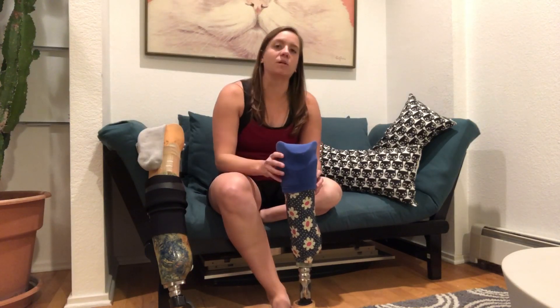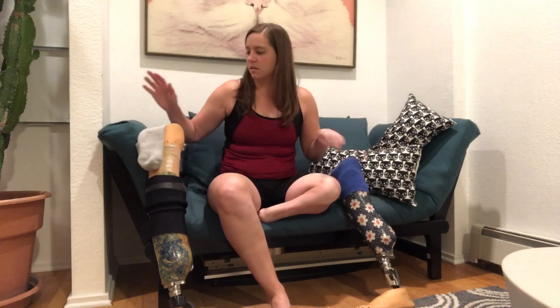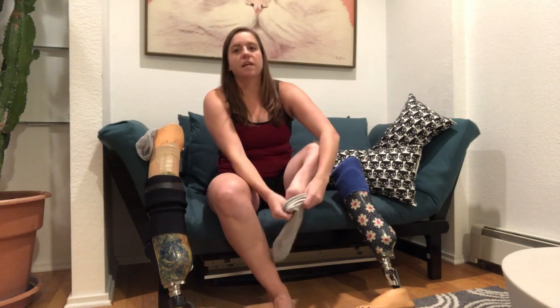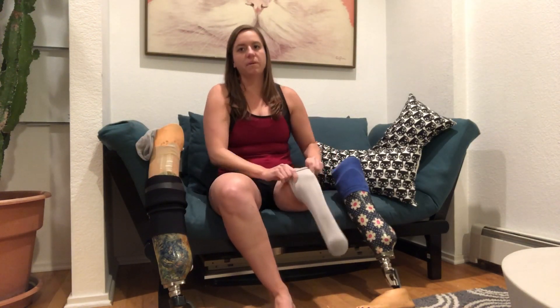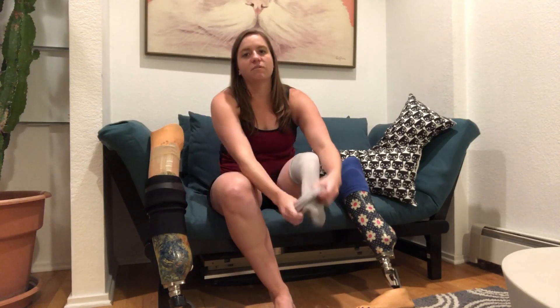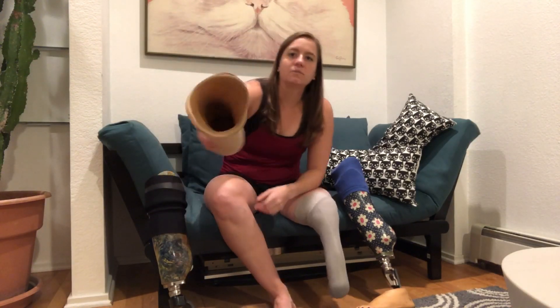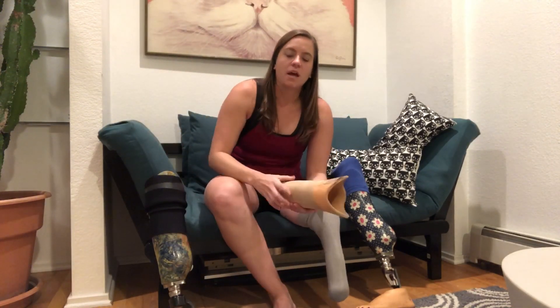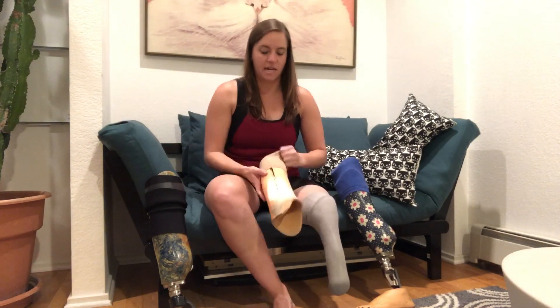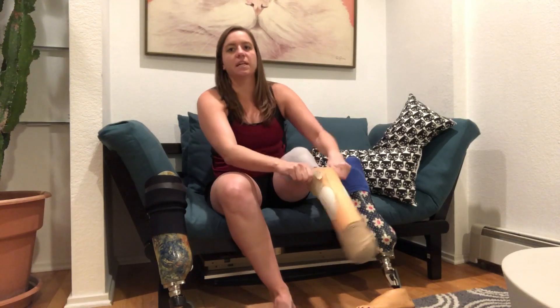That's my house leg. And then this is my everyday leg. My everyday leg takes more steps to put on. I wear a gel sock, and then because I've lost volume I have another sock that goes over that, and then I have this really thick foam liner. Because of the shape of my leg, we have to cut slits inside right here so that the liner can open as I put it on.